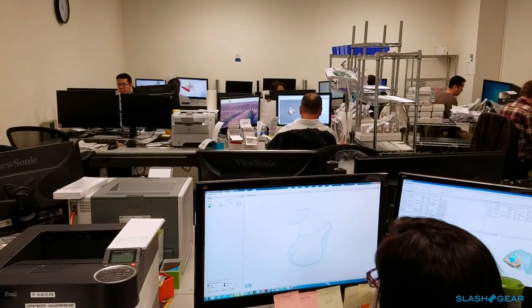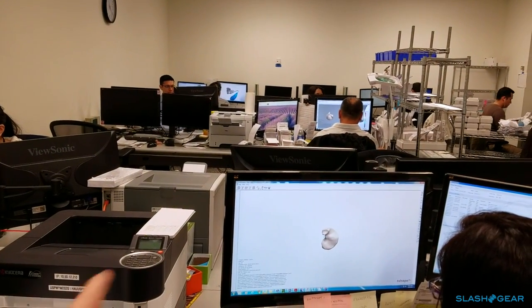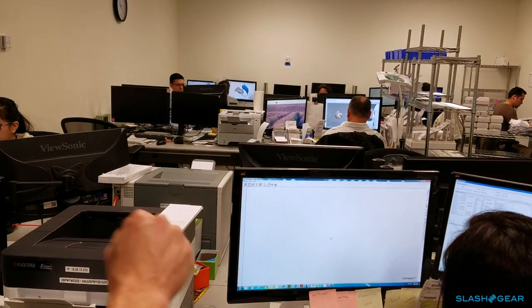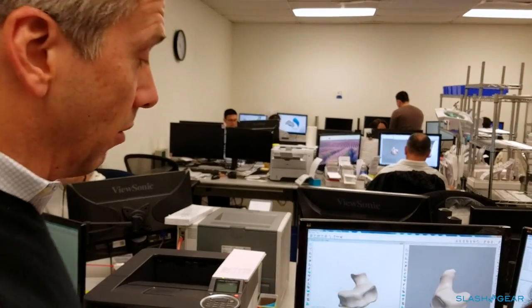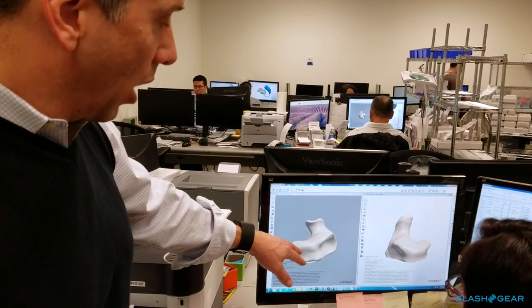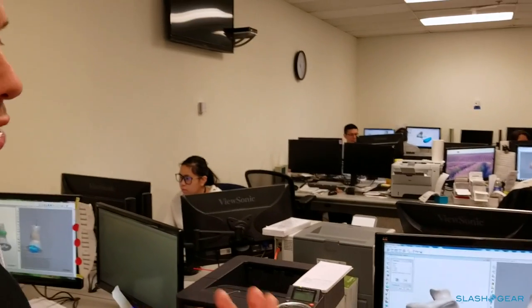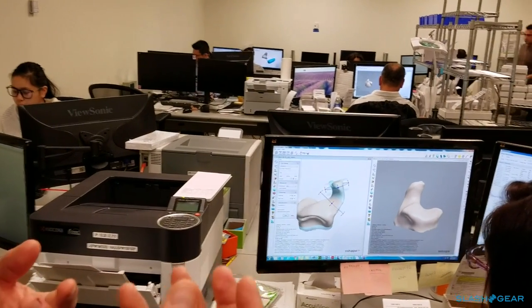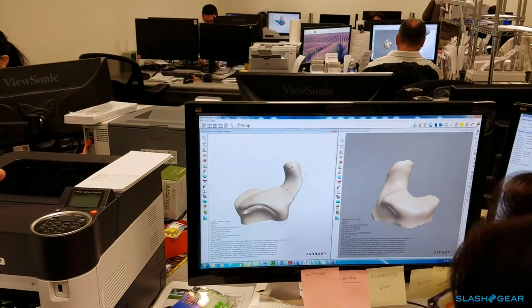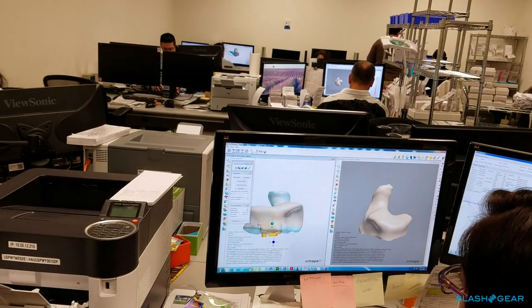This is the rough image of what the iScan actually scans — a physical impression that has become digitized. Now what Roger will do is finesse this ear geometry so that it can hold the components you requested within the hearing aid, whether that's a push button volume control or what matrix you may need for your hearing loss. She'll finesse it so it sits the proper way in your ear and holds the components in the best possible way to suit your geometry.